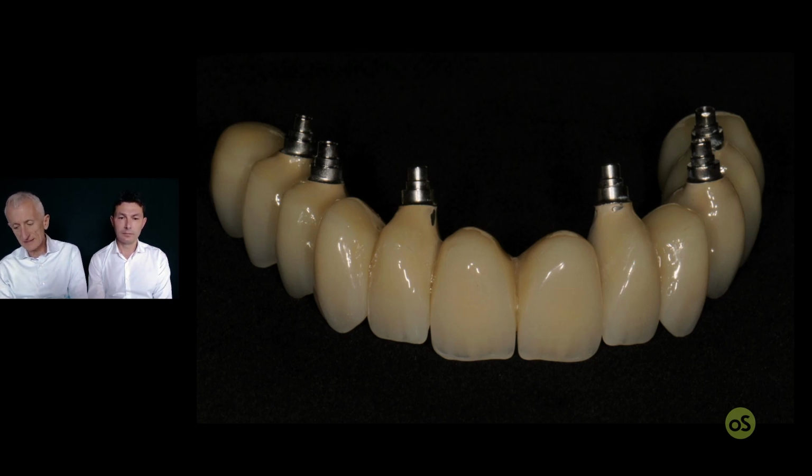And how does he know this information? Well, as I say, the best is that he's sitting beside the doctor, at least during some step of the procedure, so he can see and they can discuss. Like, I want a compression here, and is it better to add material, or is it better to remove some soft tissue or even some bone, and so on. So it is a joint work, okay?